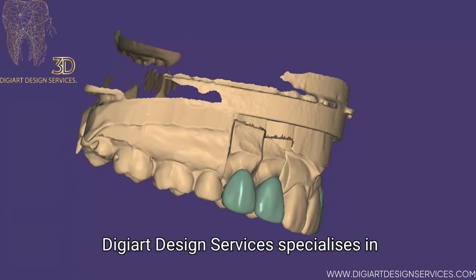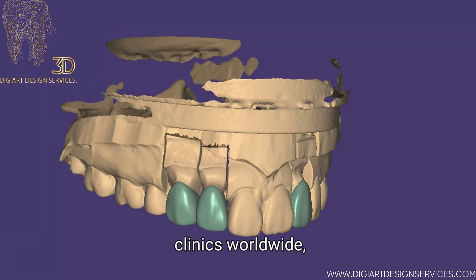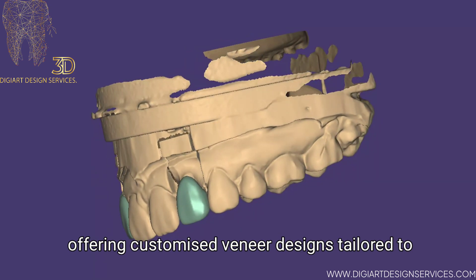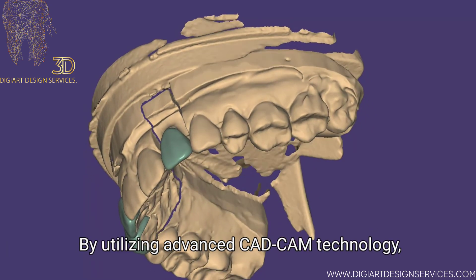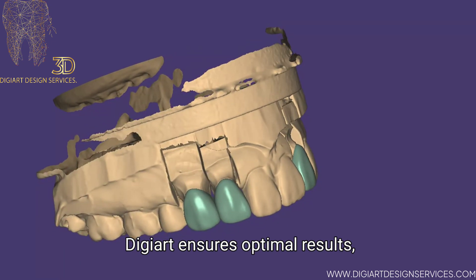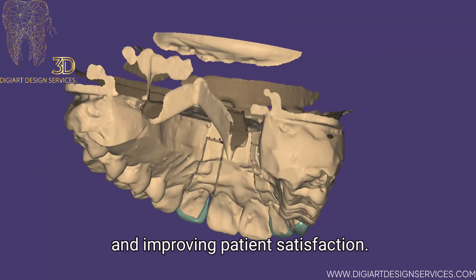DigiArt Design Services specializes in providing this service to dental labs and clinics worldwide, offering customized veneer designs tailored to each patient's needs. By utilizing advanced CAD-CAM technology, DigiArt ensures optimal results, reducing chairside adjustments and improving patient satisfaction.